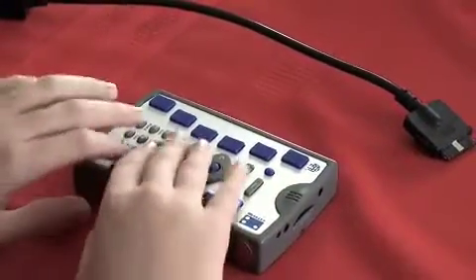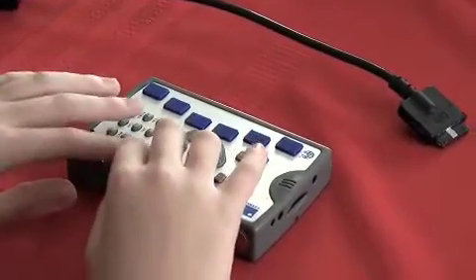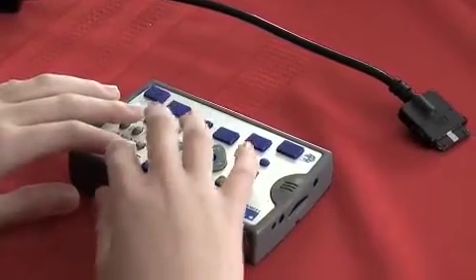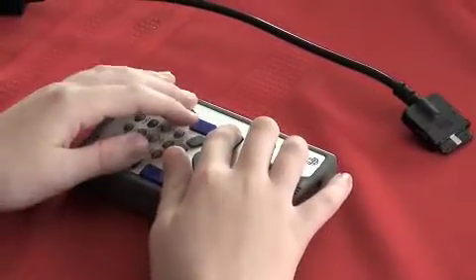On the opposite side of your unit are three keys. The left key is Shift. If you want to capitalize a letter, you can hold that down while you're typing the letter in.